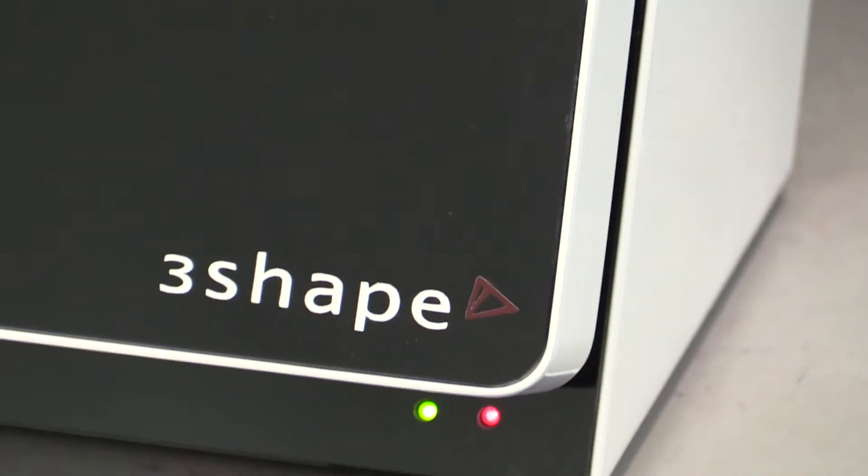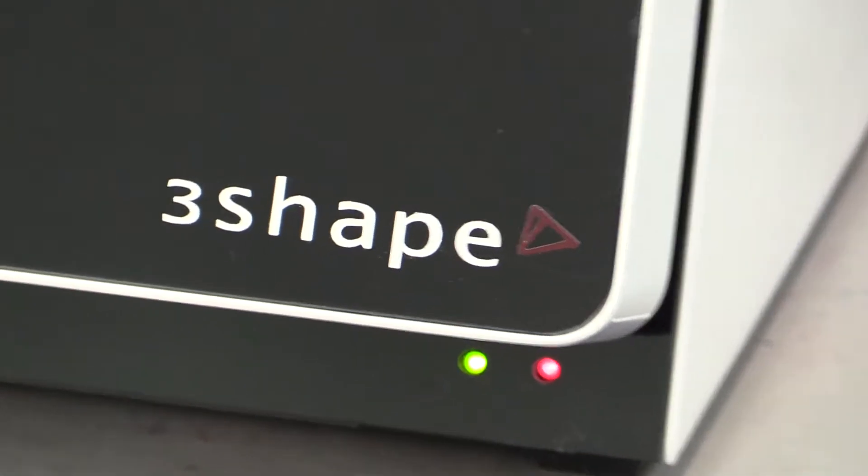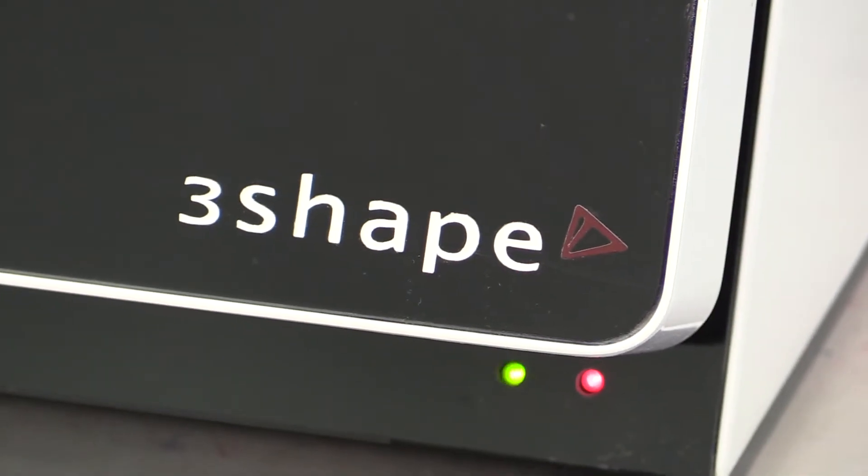Hello, this is Dr. Scott McLean and this is a YouTube video about implant dentistry. Today we'll be talking about the three-shape desktop scanner.